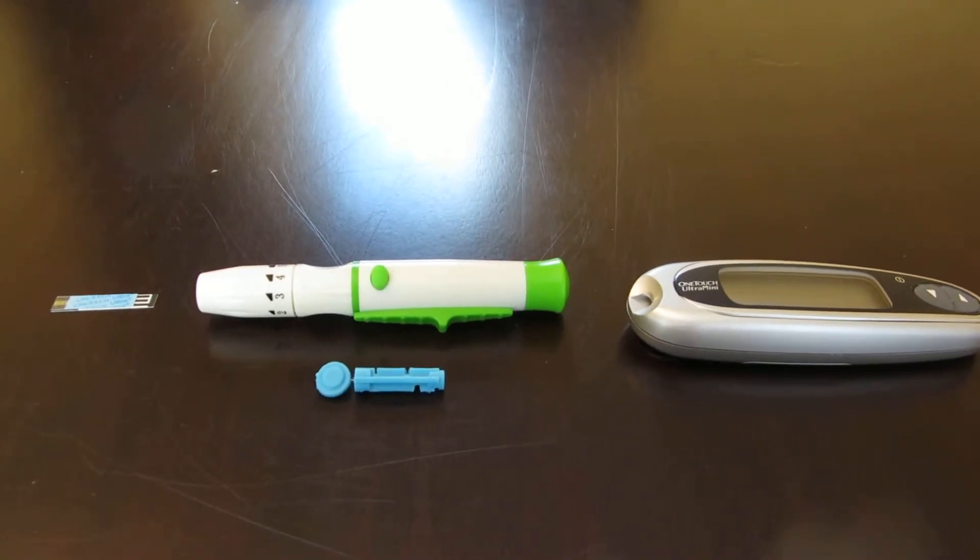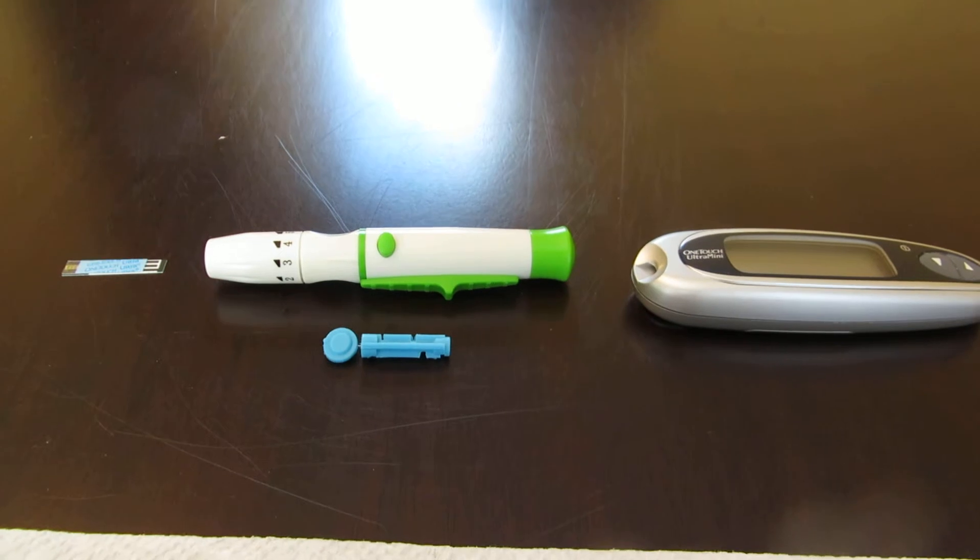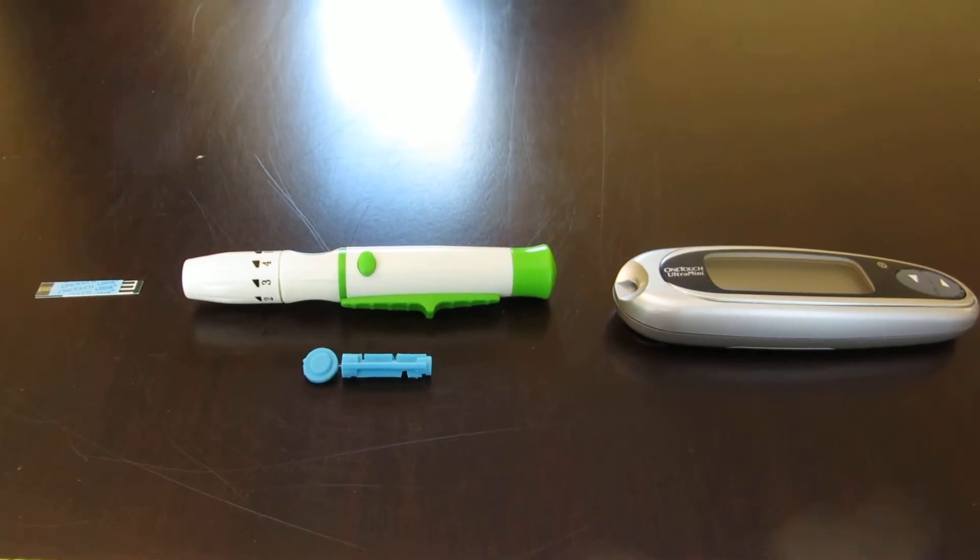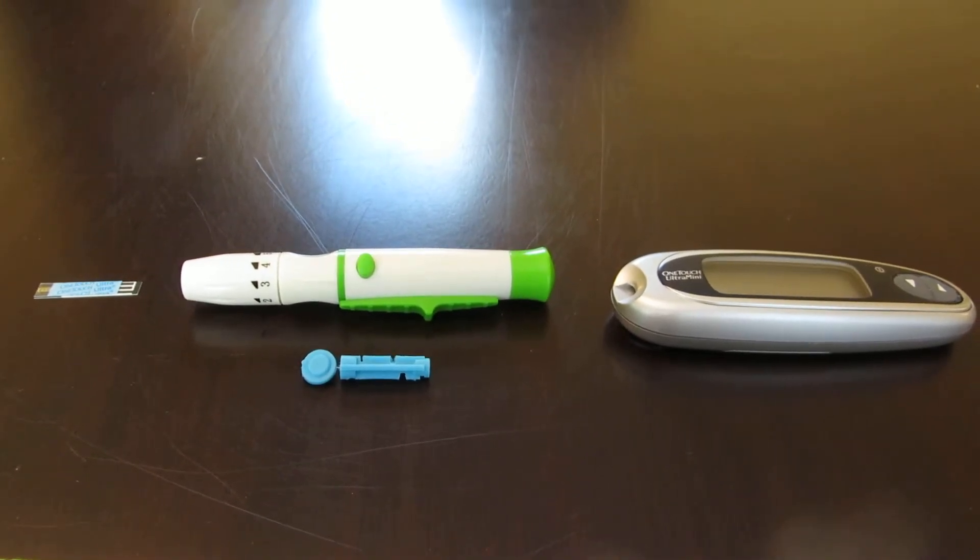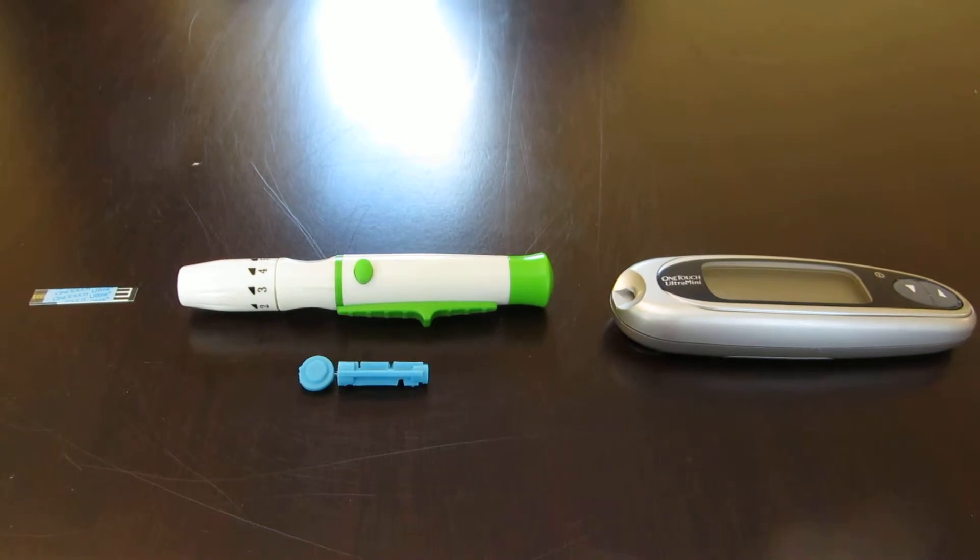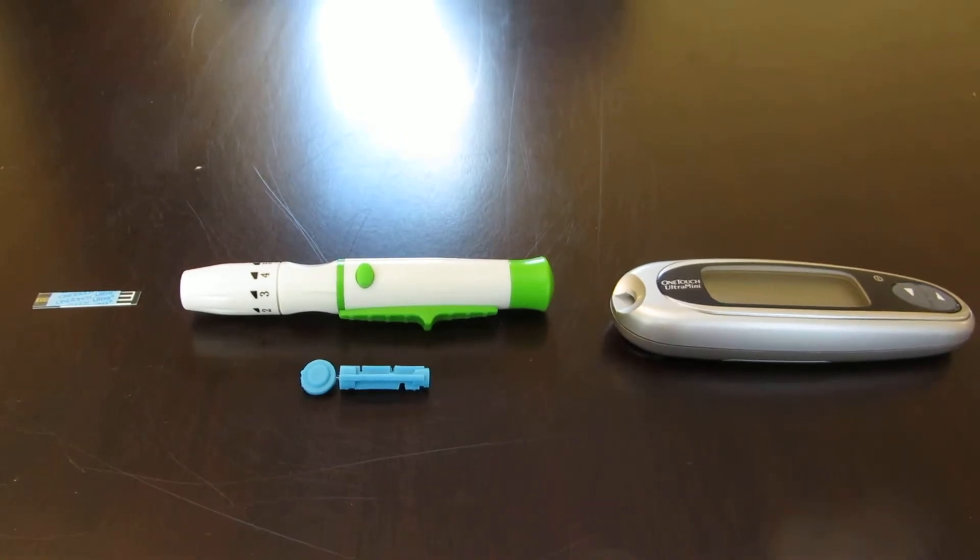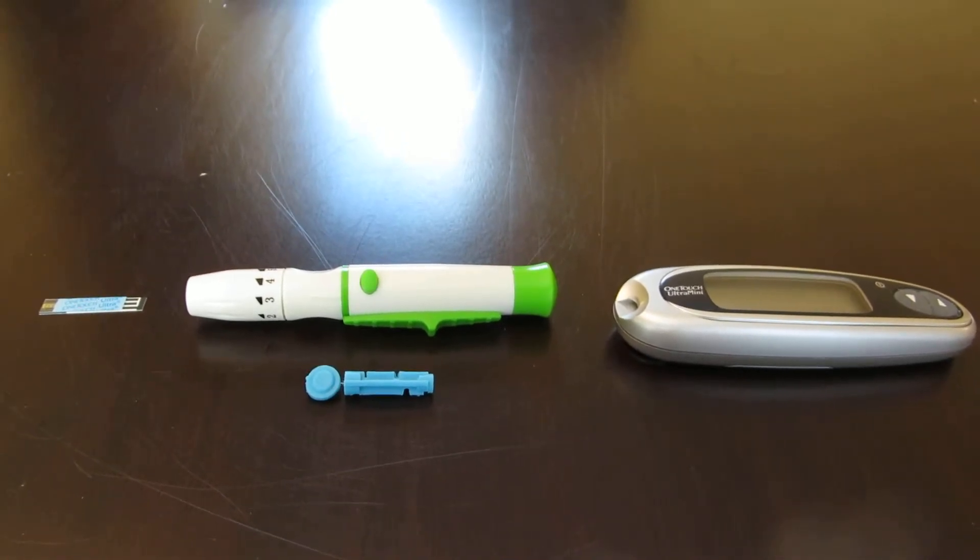Good morning! For those newly diagnosed with diabetes or wanting to monitor blood glucose levels, this demonstration shows how easy it is to test your blood.